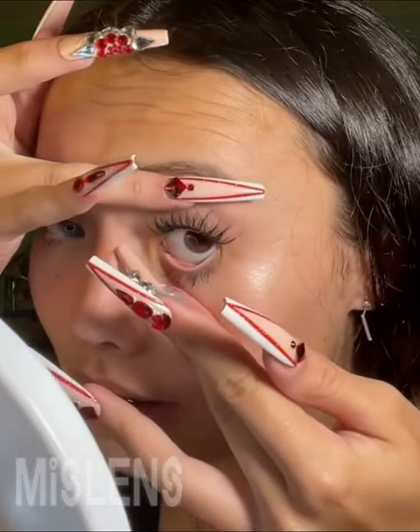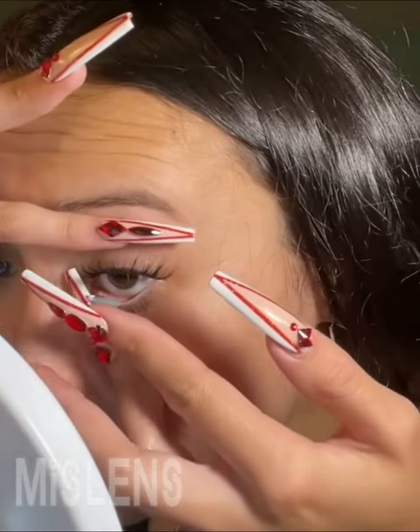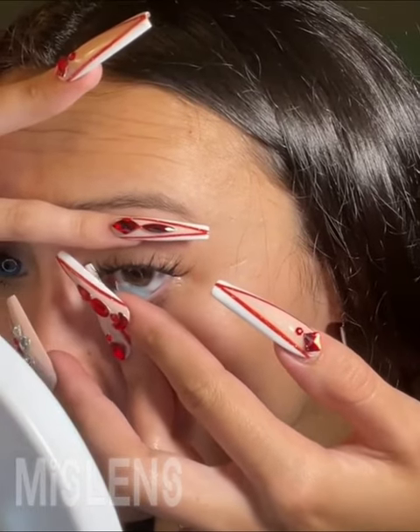Now because I have smaller eyes, I do have to use both hands to pull up and down. Let me show you. Pulling my eyelid down, I put the contact into my eyelid, and then I'll push my lash over it.